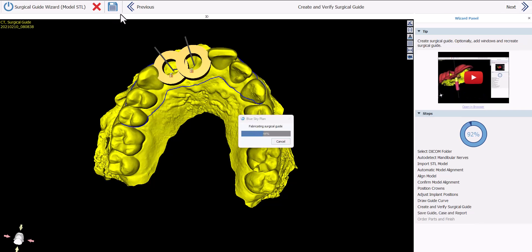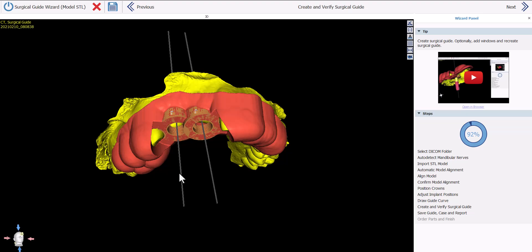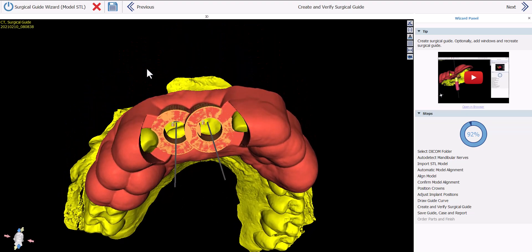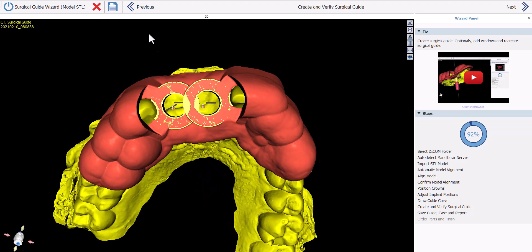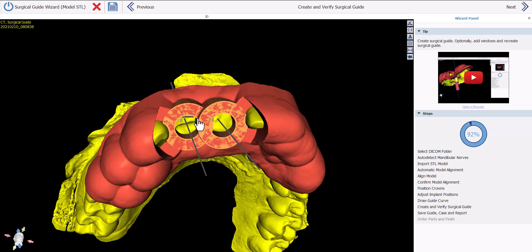The software is now fabricating the surgical guide. We can see on screen that the vertical axis of each implant goes through the middle of the surgical guide. The brown software guide tubes indicate interference on the inner diameter of each hole, but the surgical guide itself takes that into consideration and removes the overlapping interfering parts of each software guide tube in the adjacent osteotomy area. Click Next.